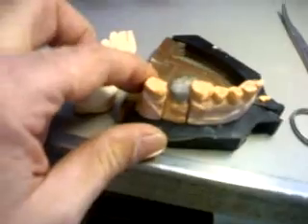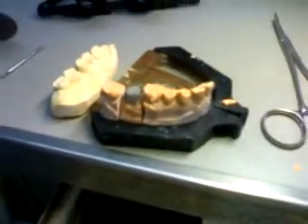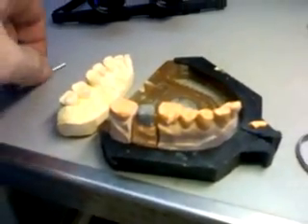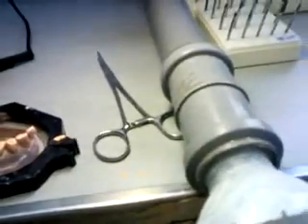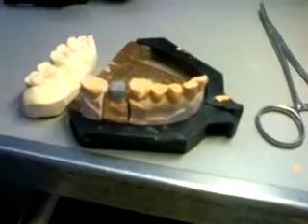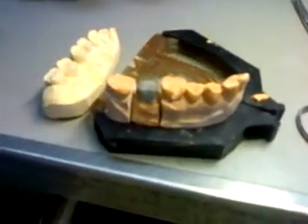The first thing I do when I get a case is check what kind of metal I am using by looking at the prescription. This case is done with a non-precious metal. Whatever metal I use, I will be using a dust collector and making sure I am wearing the right outfit — my lab outfit, lab cap, so dust particles don't get in my hair. You want to keep away from this kind of dust. Then I get my calipers, because measurements are going to be important.